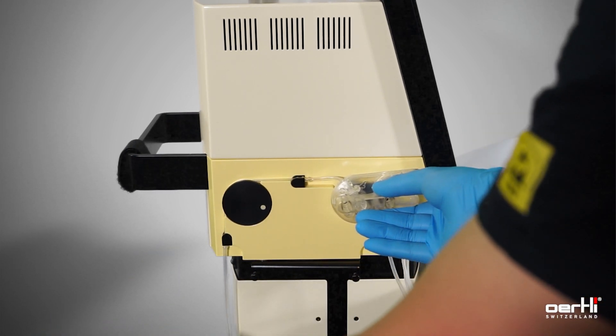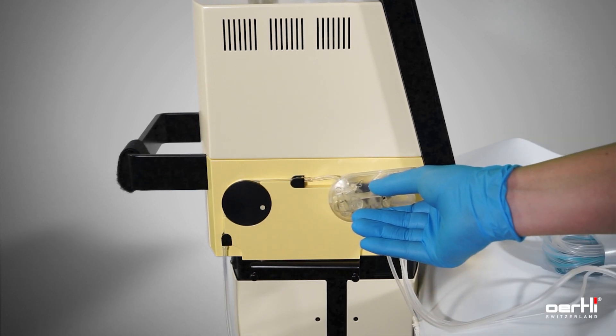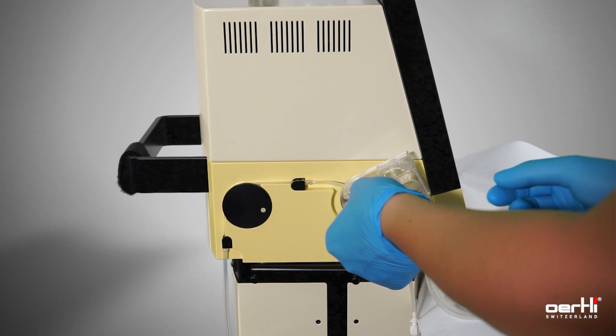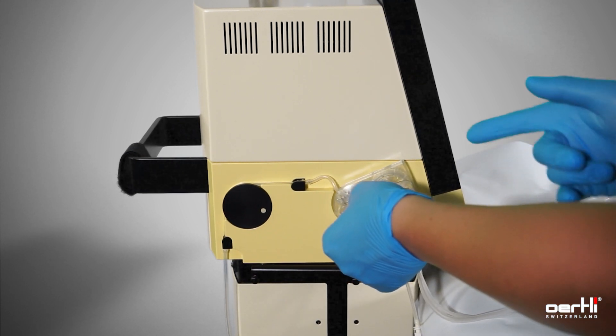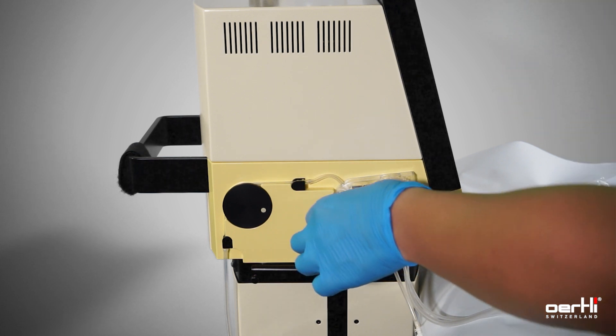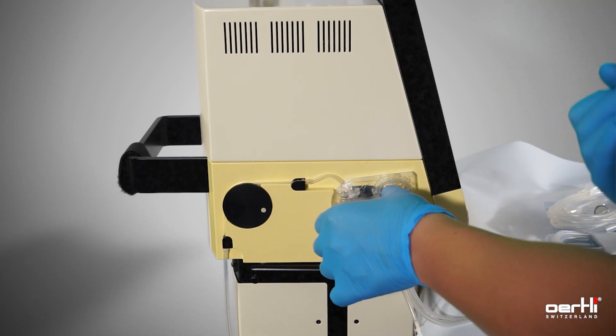Release the tube. It's not sterile anymore. You don't have to touch it anymore. Then insert the cassette slightly tilted. Press it down until you hear that clicking sound.